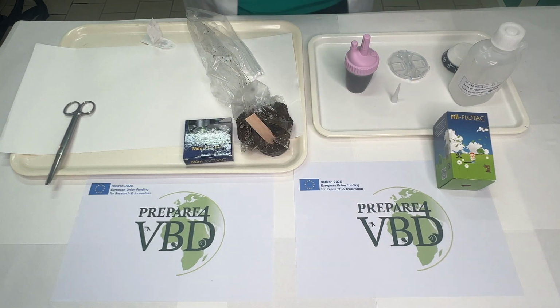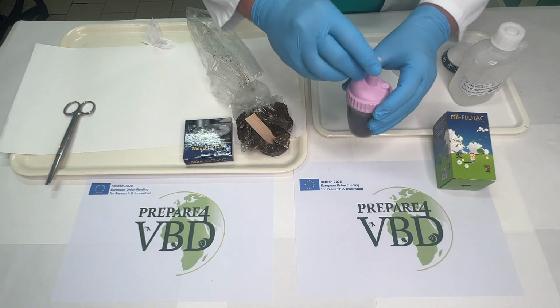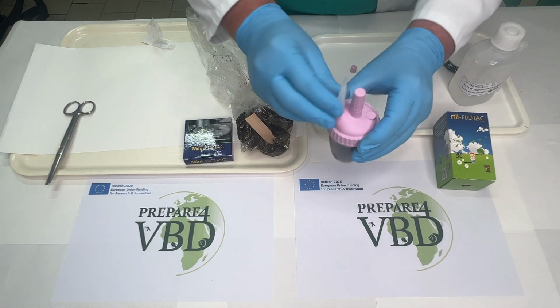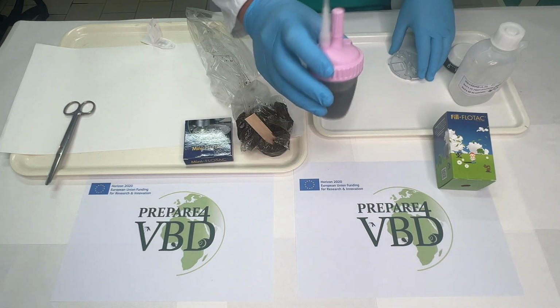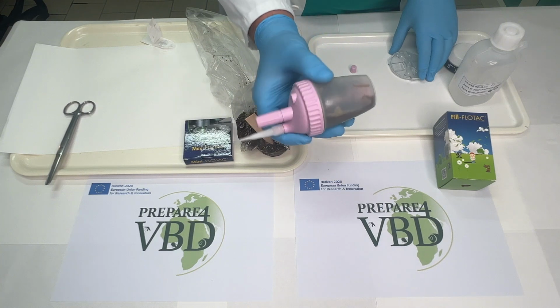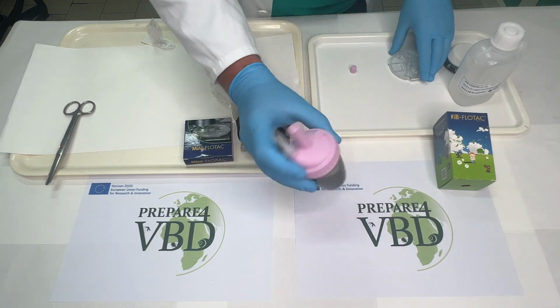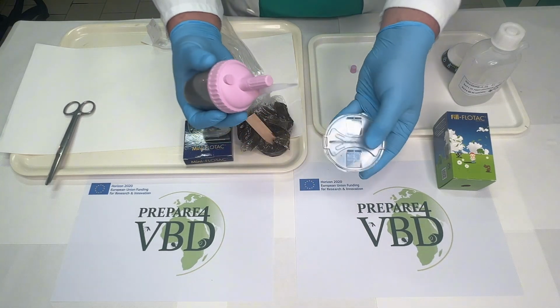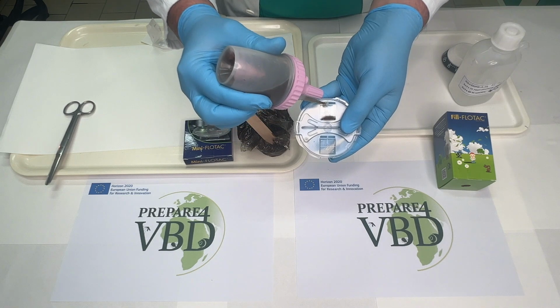Okay, so the next step will be that Antonio will put the tip on the lateral hole of the Fill-FLOTAC, because in this way we will fill both chambers of the mini-FLOTAC. But before that, he has to invert 5 times in order to mix the sample very well, and then squeeze it in order to fill the flotation chambers. We will do this mixed inversion 5 times. Each time we will fill the first and then the second chamber.